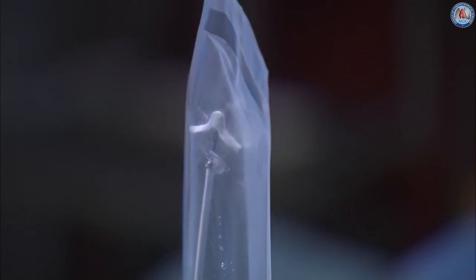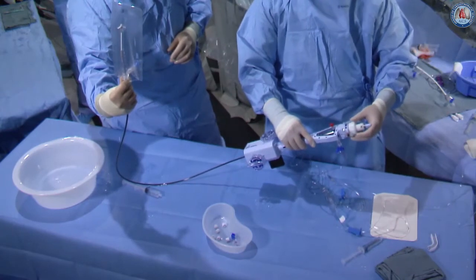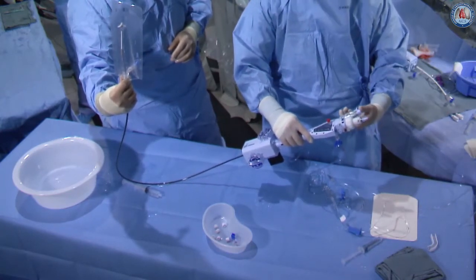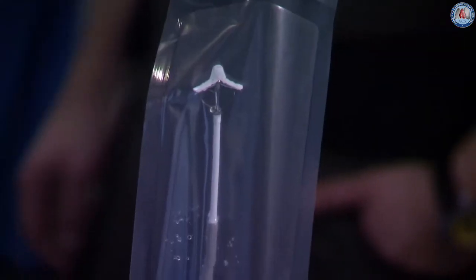The first thing we're going to do is raise the grippers. We're going to unlock the clip — the clip is at 120. Now we're going to drop the grippers and close down to 60. It's approximately 60. We're going to go ahead and re-lock the clip.